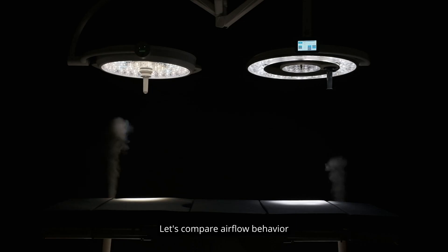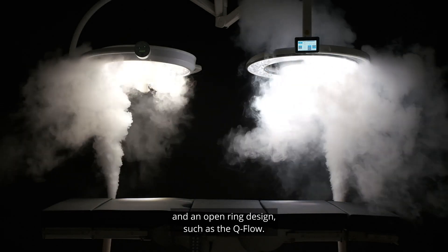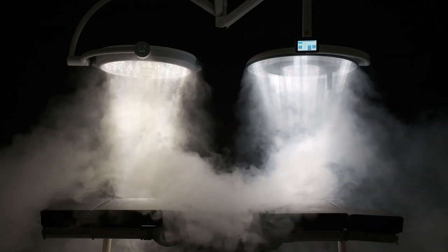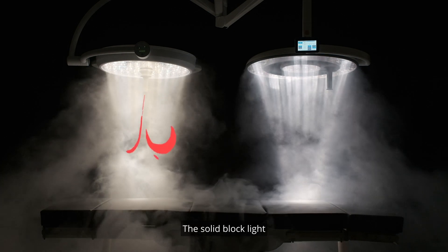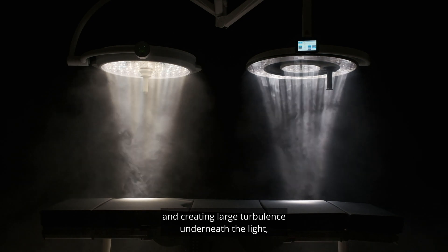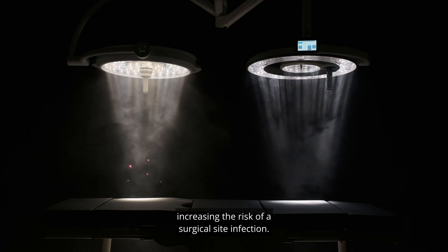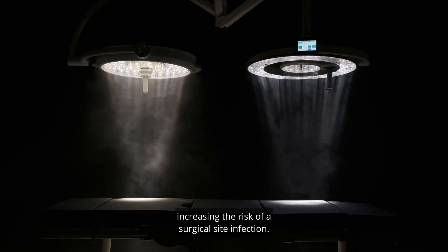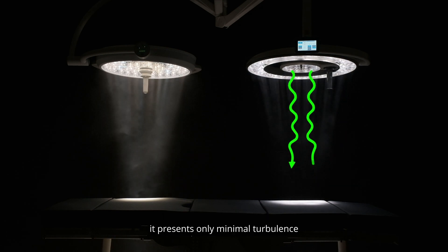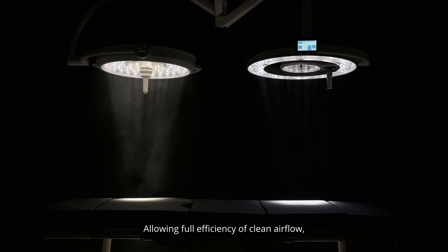Let's compare the airflow behavior of a solid block light versus an aerodynamic design. The solid block light on the left actually reverses the airflow and creates large turbulence underneath the light, which can lift up particles from the non-sterile area into the surgical site, increasing the risk of a surgical site infection. On the right, the aerodynamic design — Q flow — presents only minimal turbulence and no changes in airflow direction, allowing full efficiency of clean airflow.